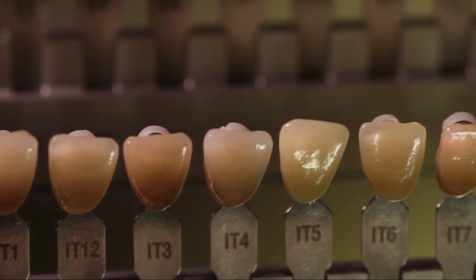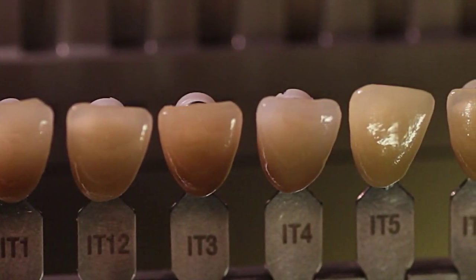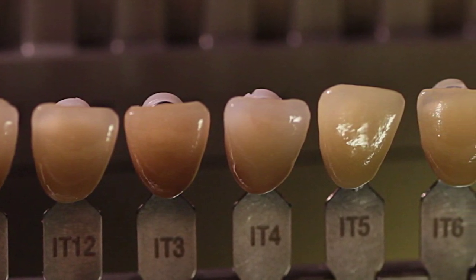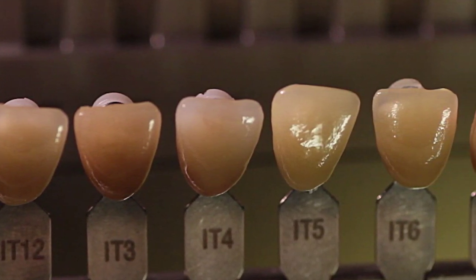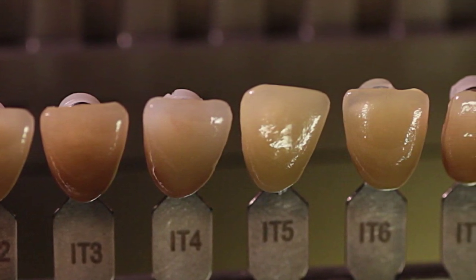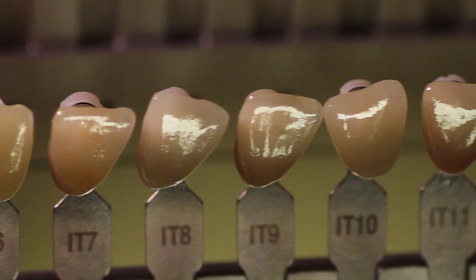There are several possible combinations of color that have been used in this series, and in varying degrees of intensity. The categories of intensity are subtle, moderate, and heavy, with brown, orange, gray, and yellow as the color choices. When we reach this age group, our dentin color is intense in appearance, with transparency layered over the top. Until now, a shade tab that takes all this into consideration has not been available to any clinician or technician, and yet we see it all the time in the mouth.